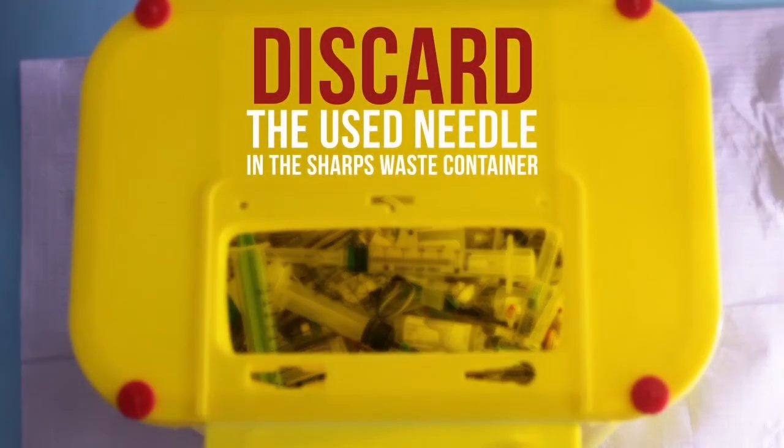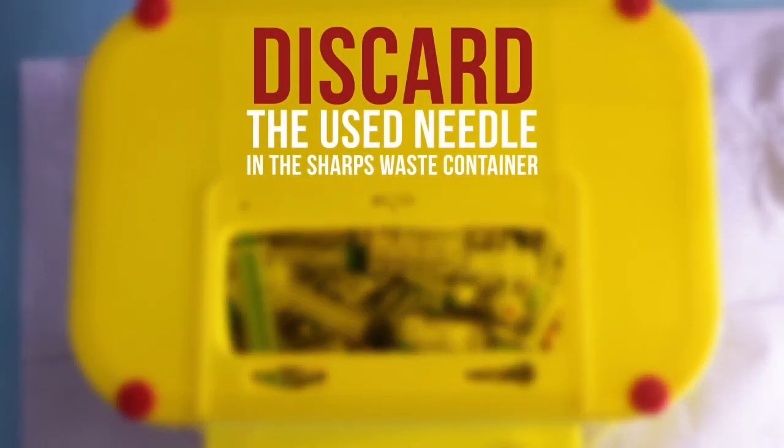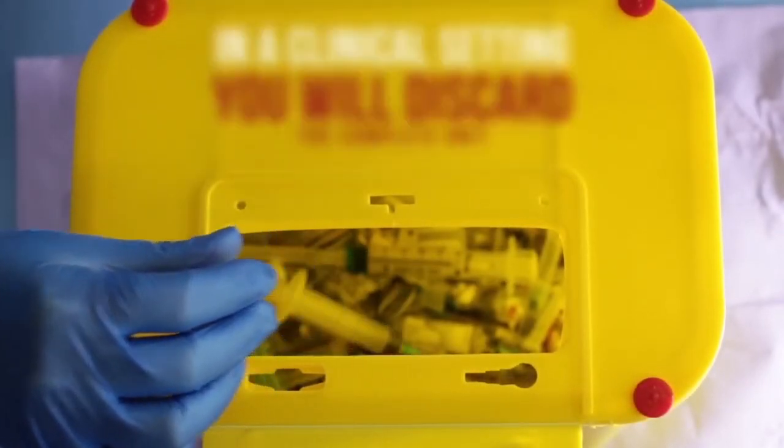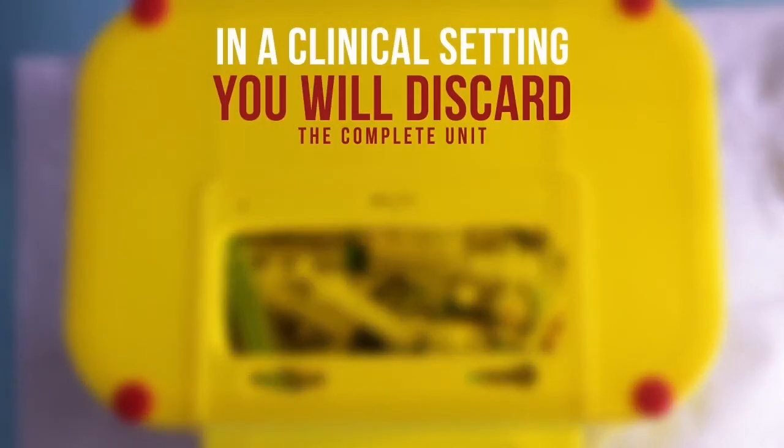Discard the used needle in the sharps waste container. In a clinical setting, you will discard the complete unit, in other words, the assembled needle attached to the syringe.